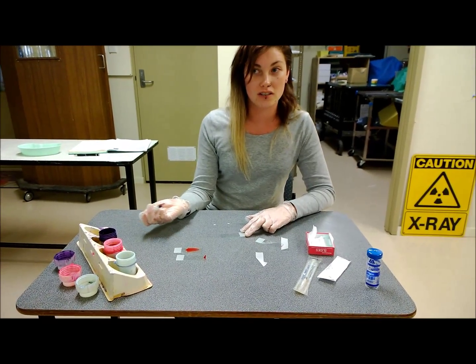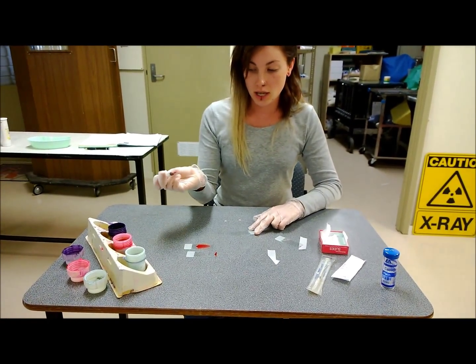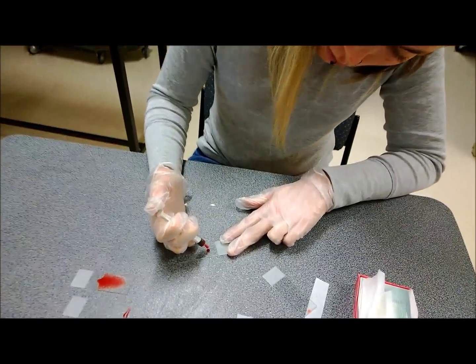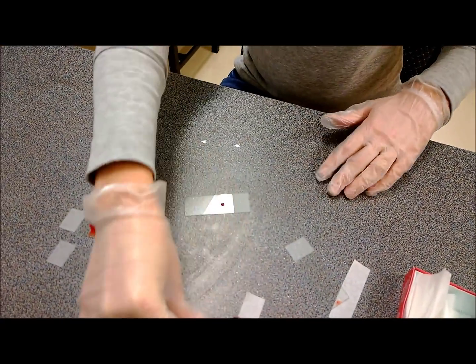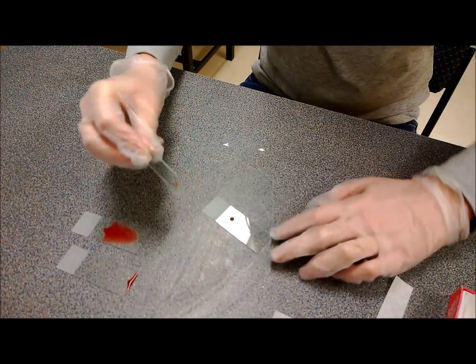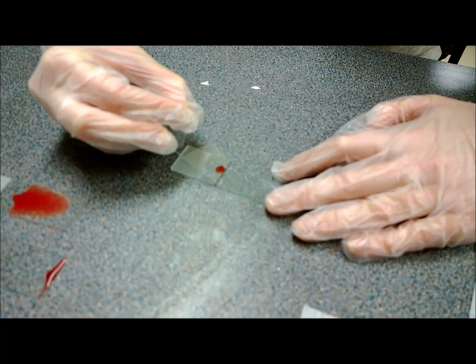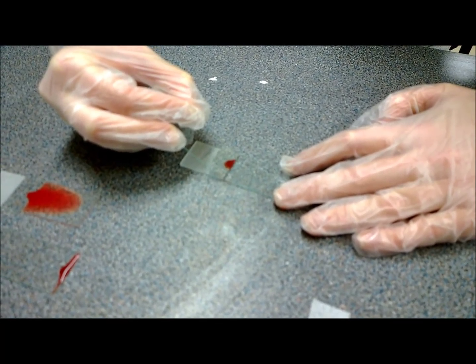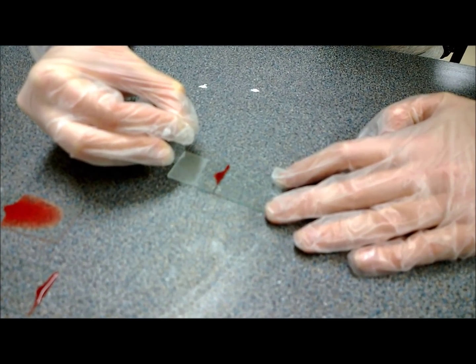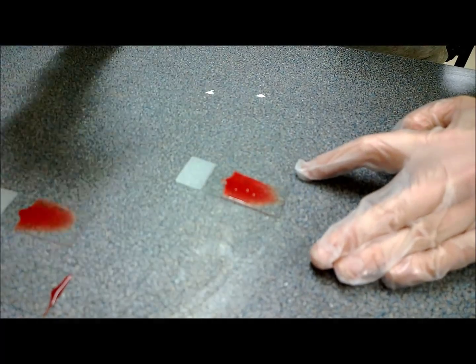I am Georgia Fitzgerald and this is my blood smear for VET 403. You get your syringe of blood and put a small amount of blood on your slide. Then you grab your other slide and draw it over until it makes a line, and then quickly push up.